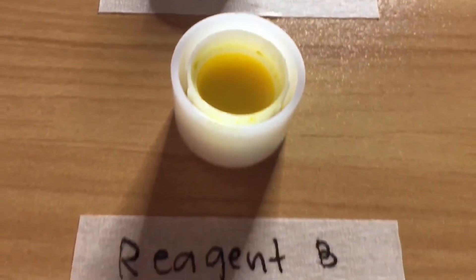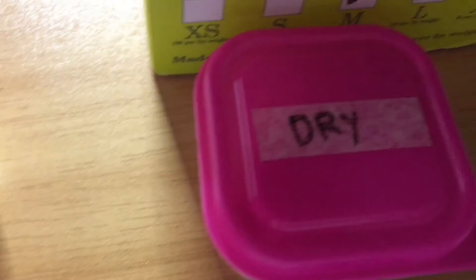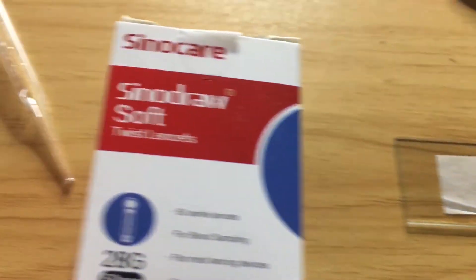For the planning, prepare all the equipment needed. Here's the equipment: blood grouping antisera A and B, paper towel, antiseptic swab, disposable gloves, sterile lancet, lancet injector, clean wooden stick, and one glass slide.